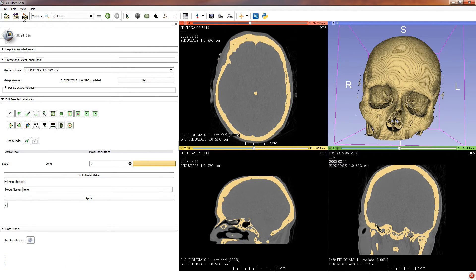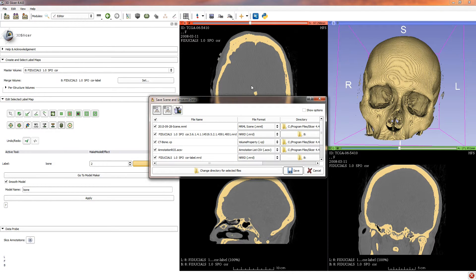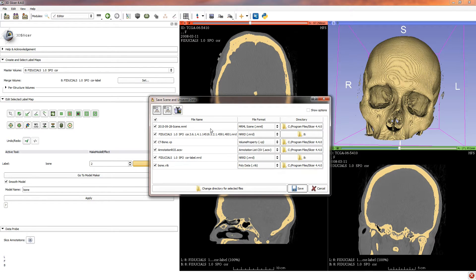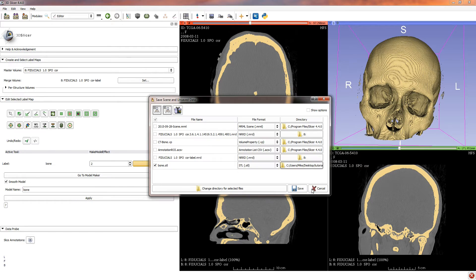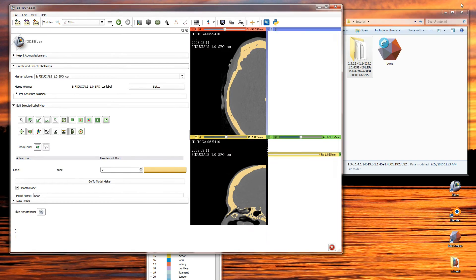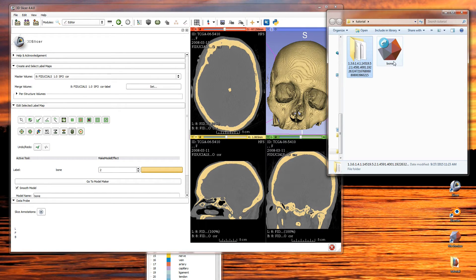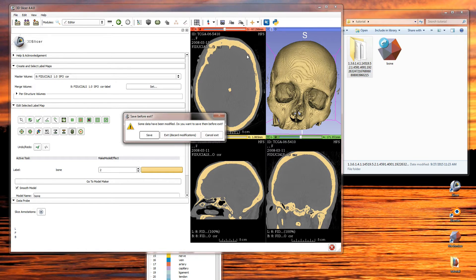To export, go to the save button in the upper left-hand side of the nav bar. You have an option to save all kinds of stuff here, but we don't need everything. Uncheck everything and just check the last one called bone.vtk. The file format I want is STL, and the folder I want it in is on my desktop called 'tutorial.' Click save — the bone file is going to be saved in STL format in that folder, called bone.STL. Looking in that folder, there's my new STL file. I'm going to quit Slicer.